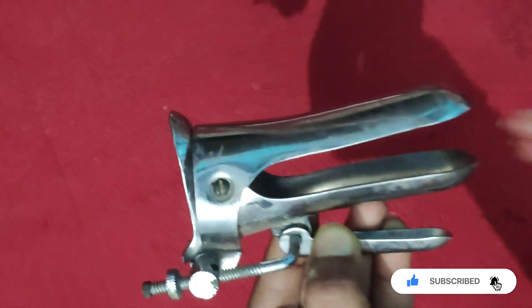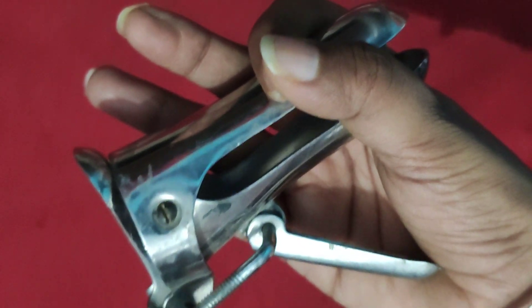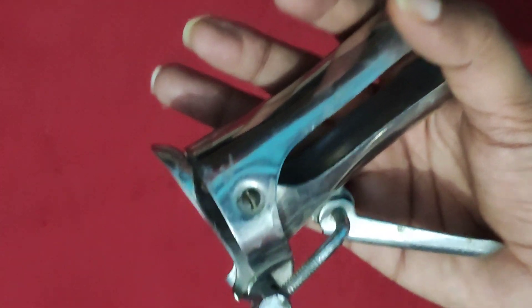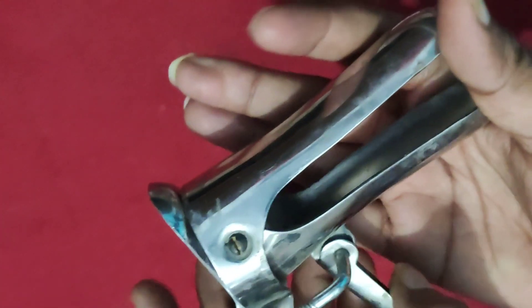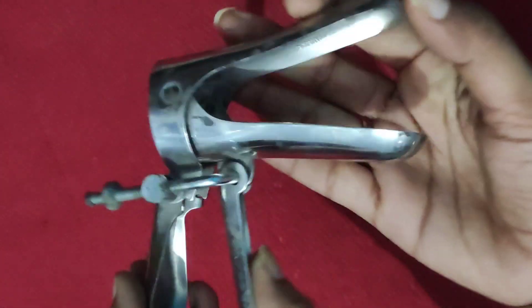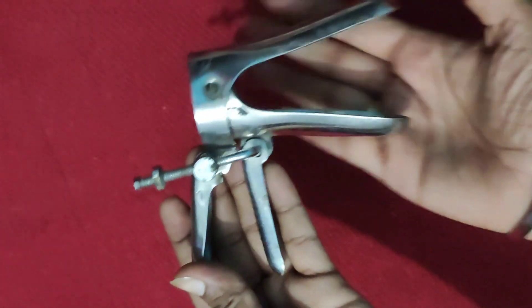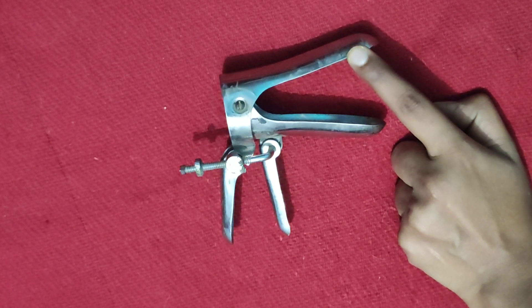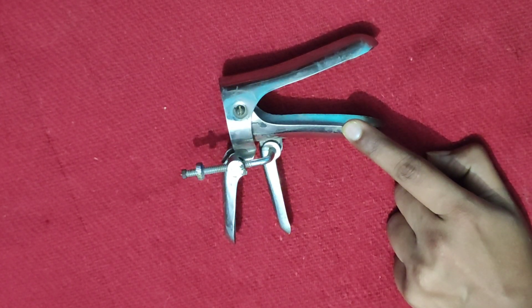This is a self-retaining vaginal speculum because once it is inserted and retained in the vagina, it will stay in place without any assistance. It is having a double blade — an anterior blade and a posterior blade.